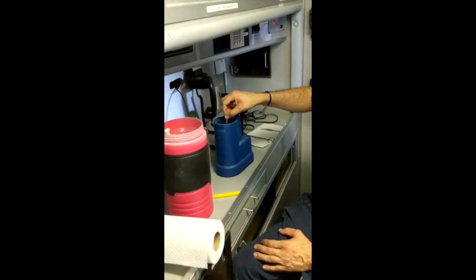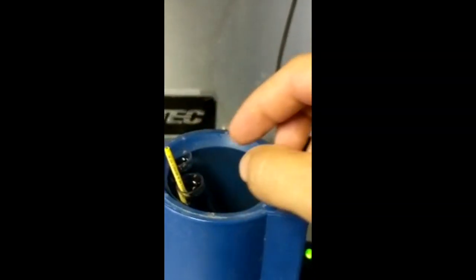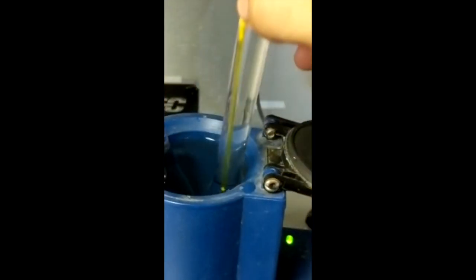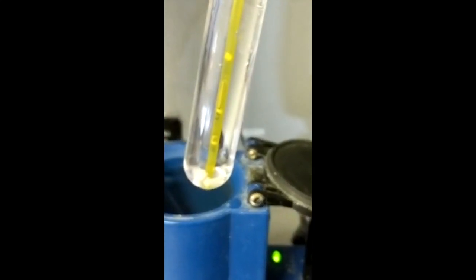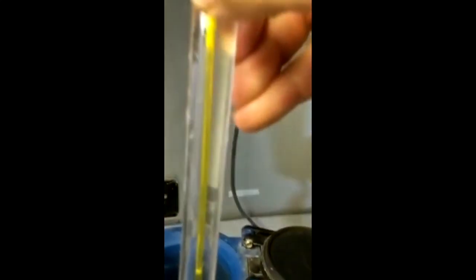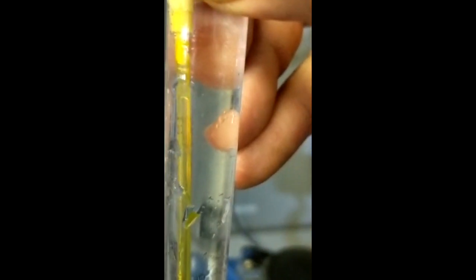5 seconds in the air, 15 seconds on the media. Here we have an example of a straw that popped. Sometimes they pop from the cotton plug, sometimes they pop from the plug at the top of the straw.